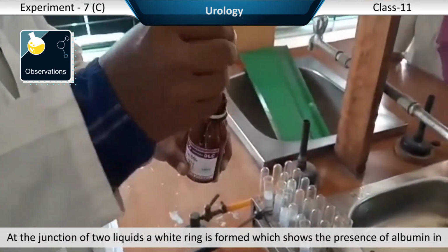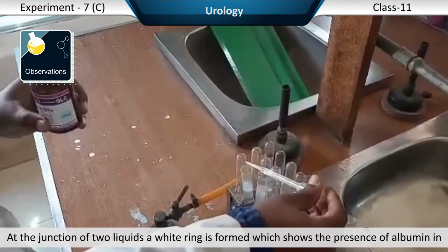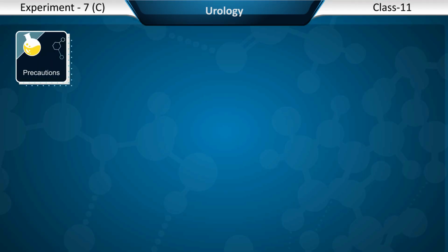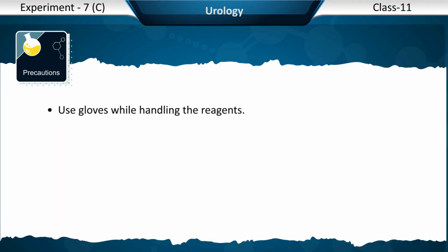At the junction of two liquids, a white ring is formed which shows the presence of albumin in the given sample of urine. Precautions. Use gloves while handling the reagents.